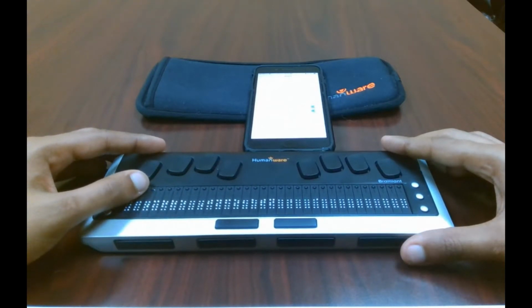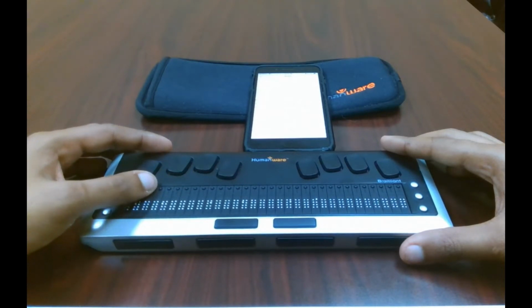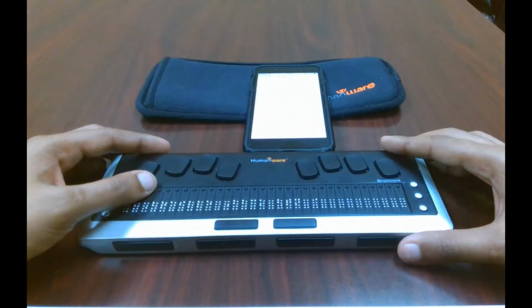I'm going to click on that. So it says Braille back button, which means that we are at the top left corner of the screen. If you ever hear it say back button, that will always mean you're at the top left corner of the screen, which is very important if you're trying to orientate yourself.